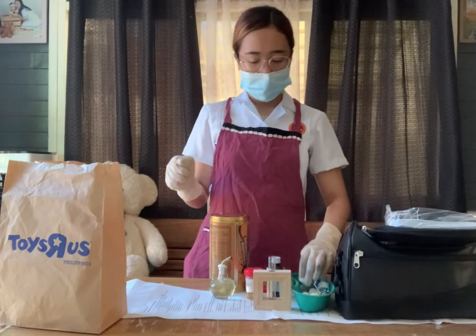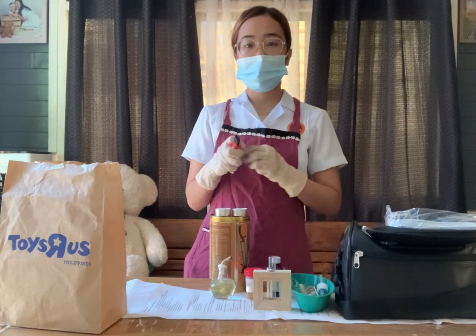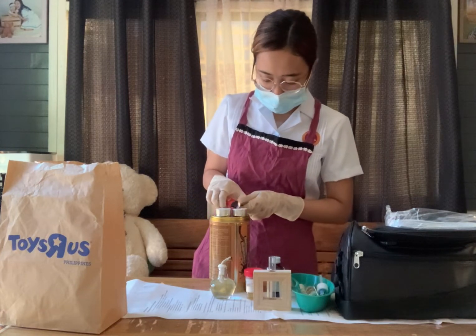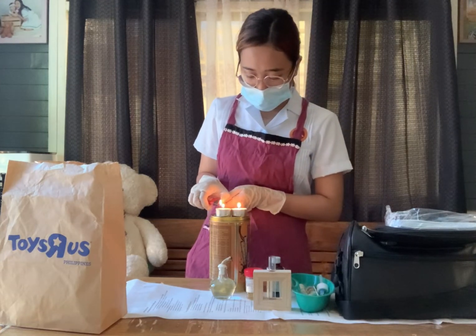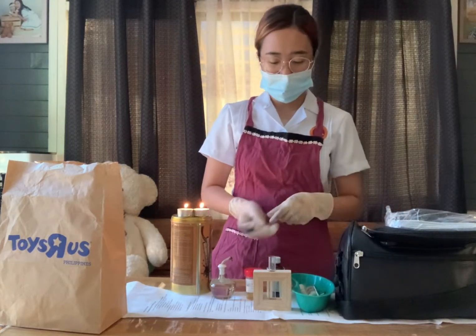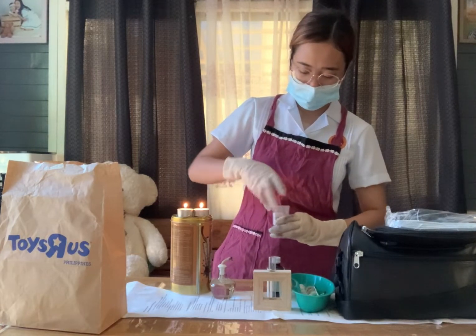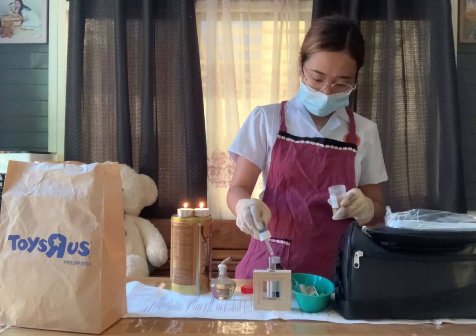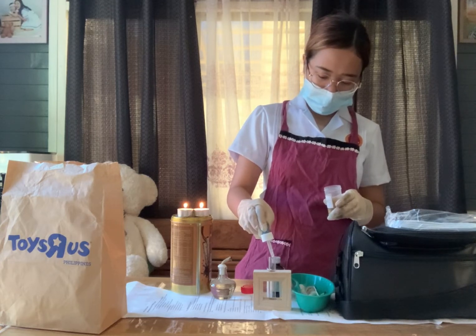To start with, light the alcohol lamp. However, due to some problems, we will use candles to improvise. Light the candles. Then put six to eight drops of urine into the test tube — one, two, three, four, five, six, seven, eight.